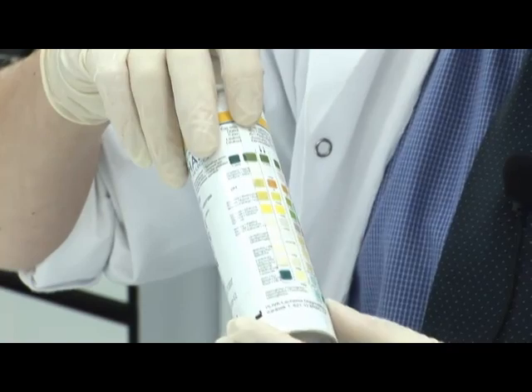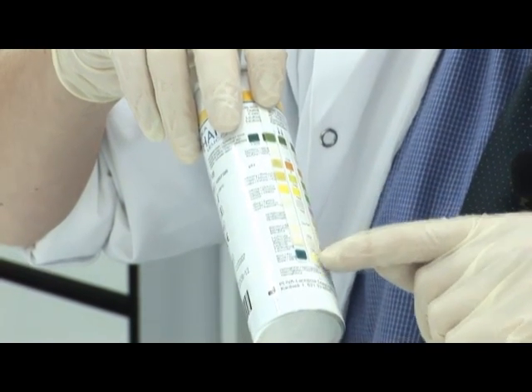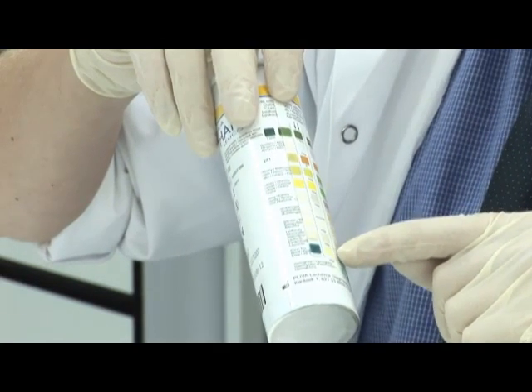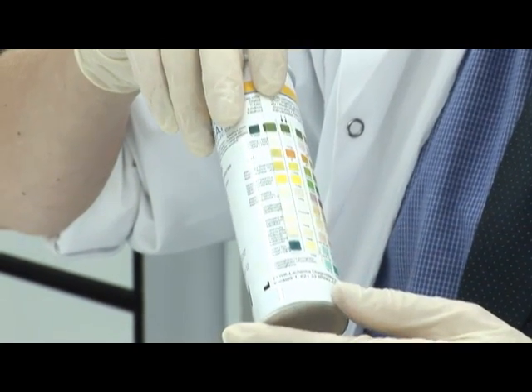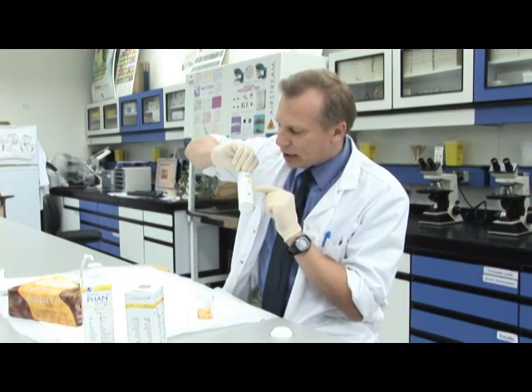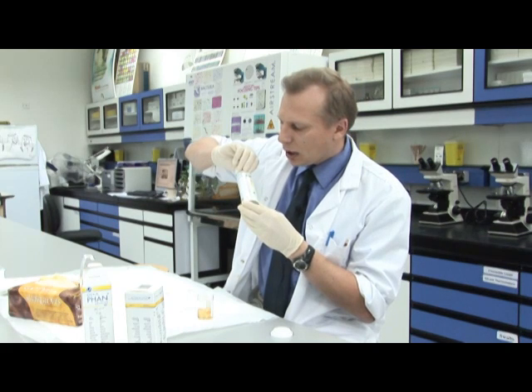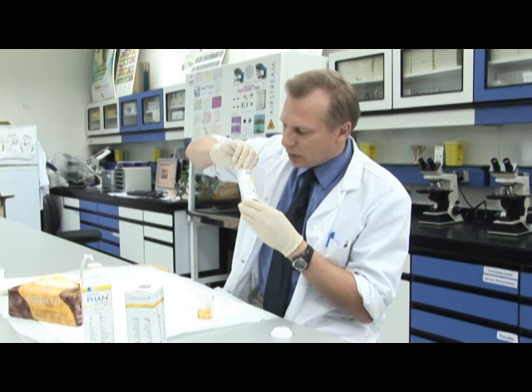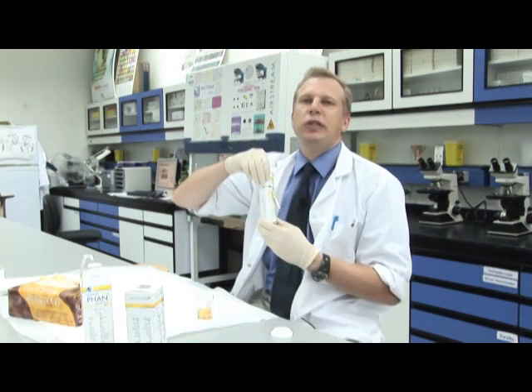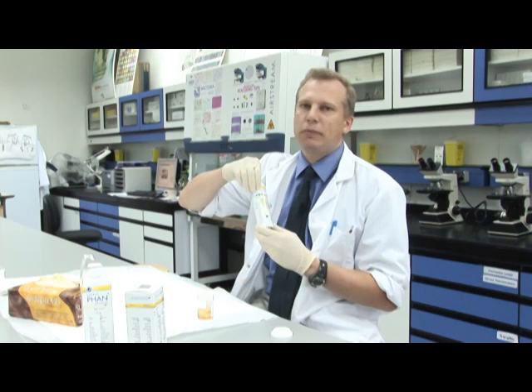Looking at the other squares, everything else is normal. There's a nice green, that's pale — that's a normal pH for urine. Glucose is normal. Ketones are normal. And we have other tests — urobilinogen and bilirubin, which are used for liver function. And leukocytes are normal. So in this case, this person has some bleeding into the urine but they don't seem to have infection or diabetes.